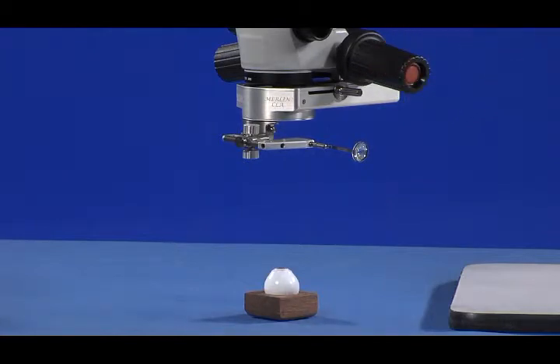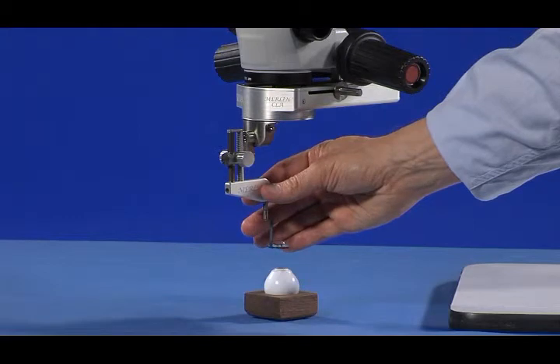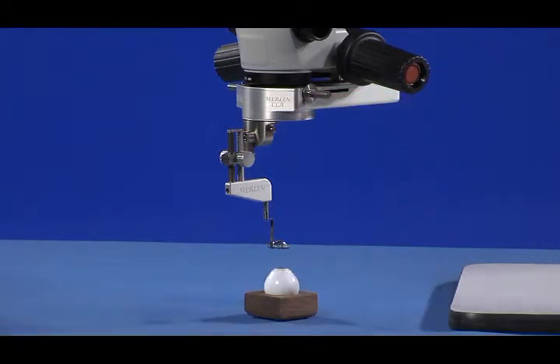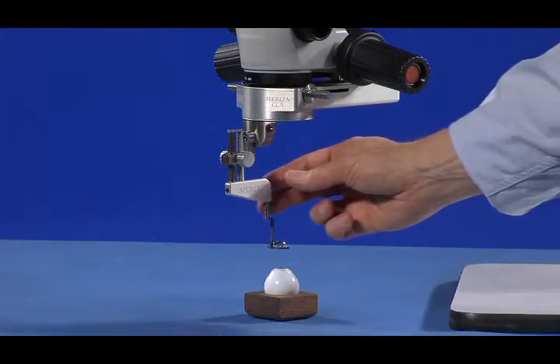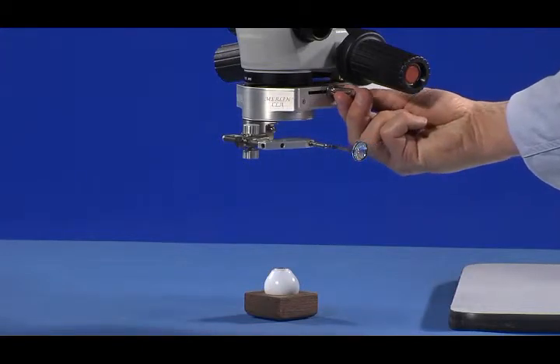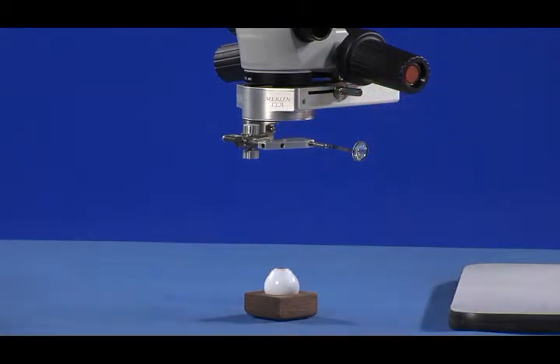If the LPU is switched to its down position in order to view the retina, then pull the condensing lens to its forward position below the microscope objective lens. If the LPU is switched to its up position in order to view the exterior of the eye, then push the condensing lens to its retracted position inside the CLA housing.